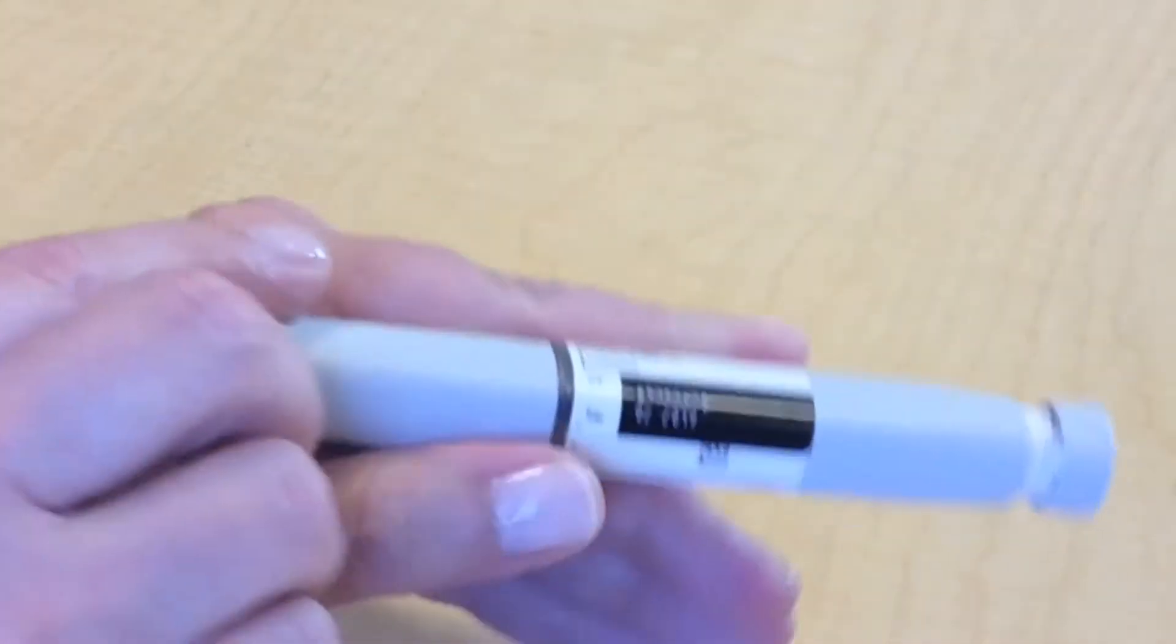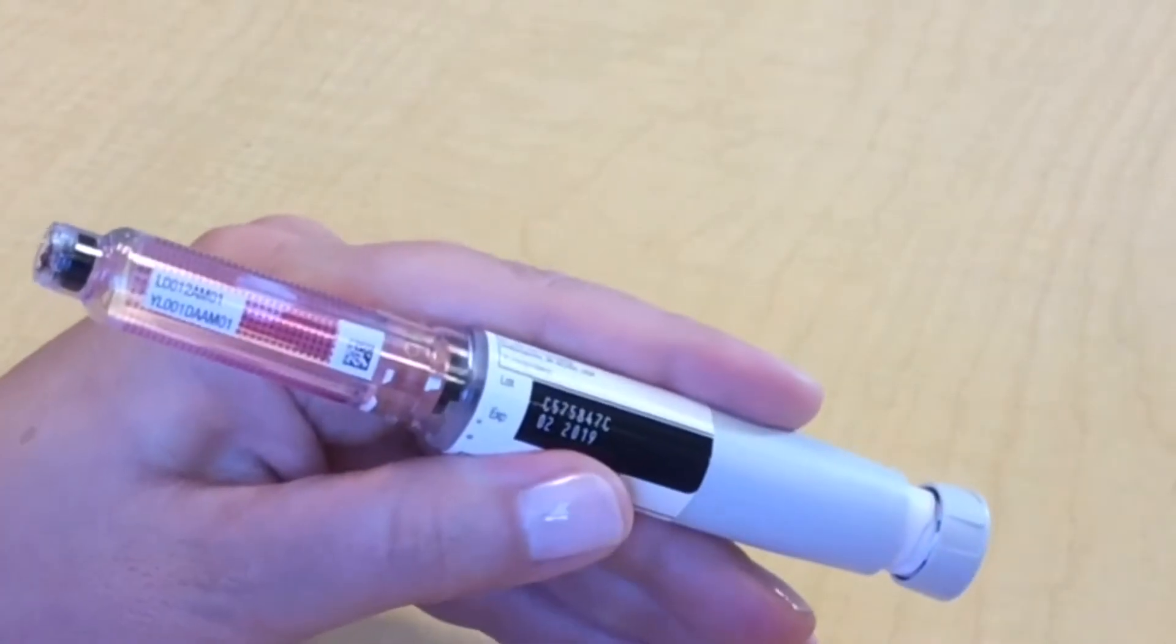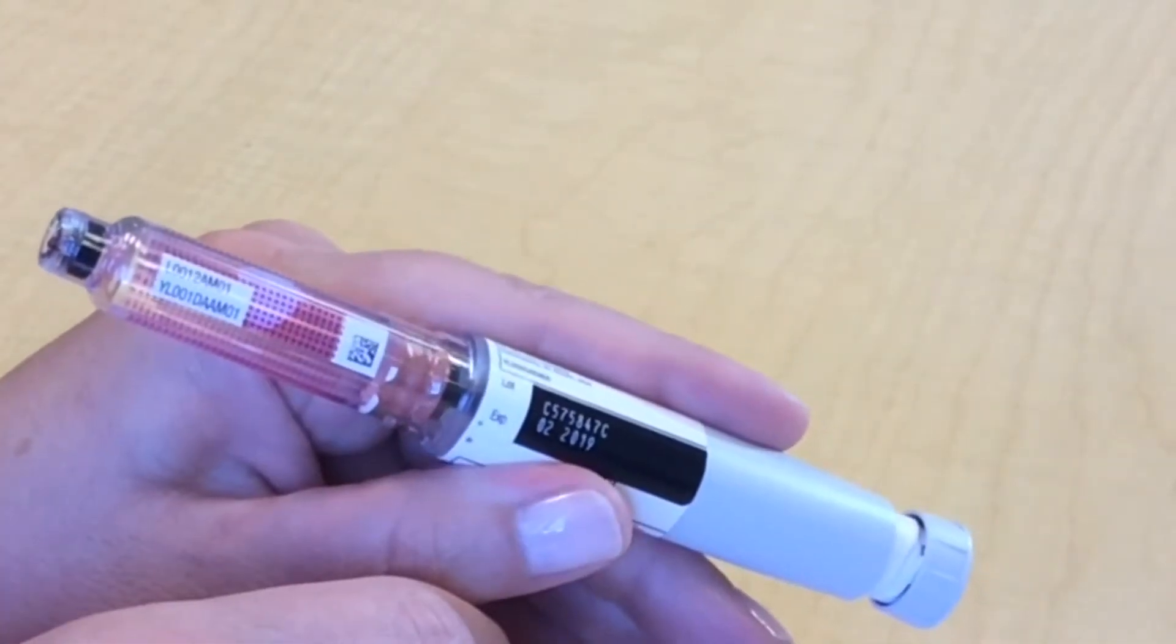Remove the cap from the insulin pen. Keep it nearby. You will need to put it back on the pen after you have finished your injection.